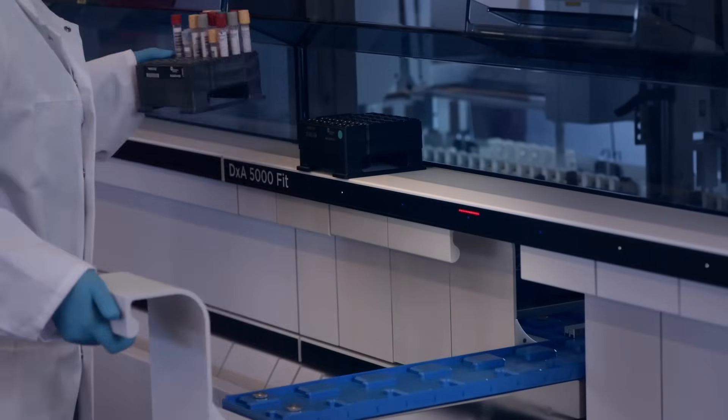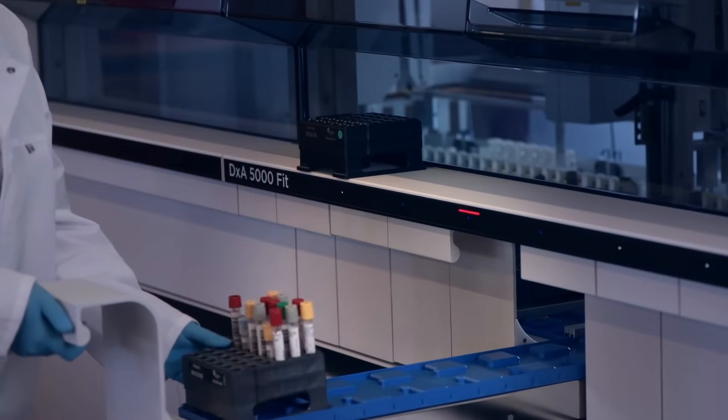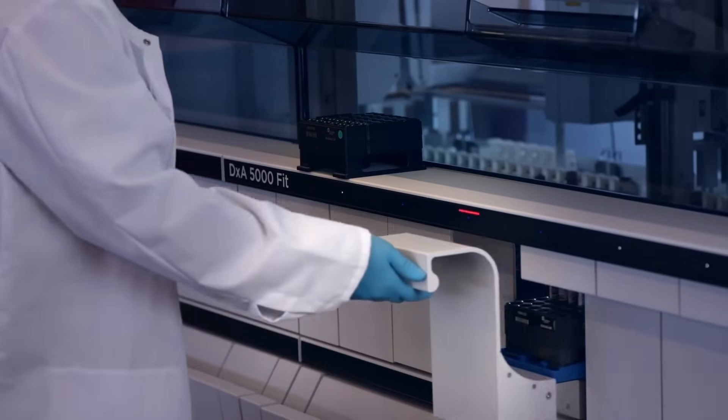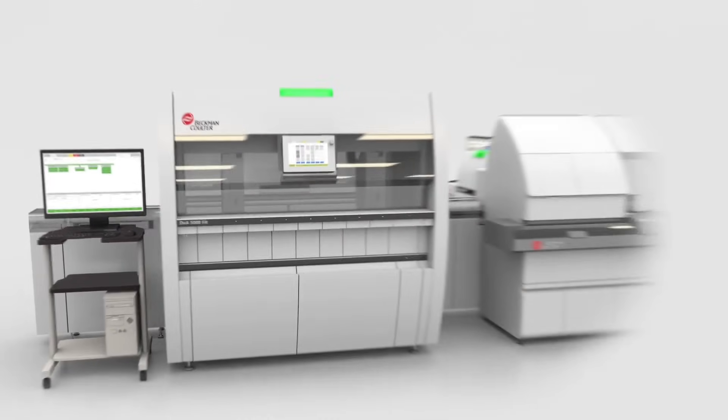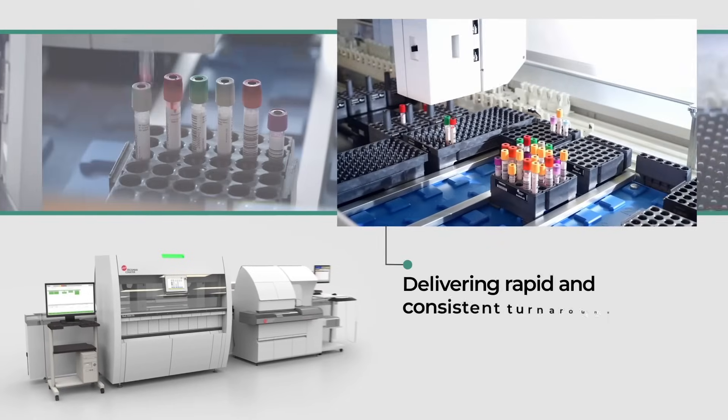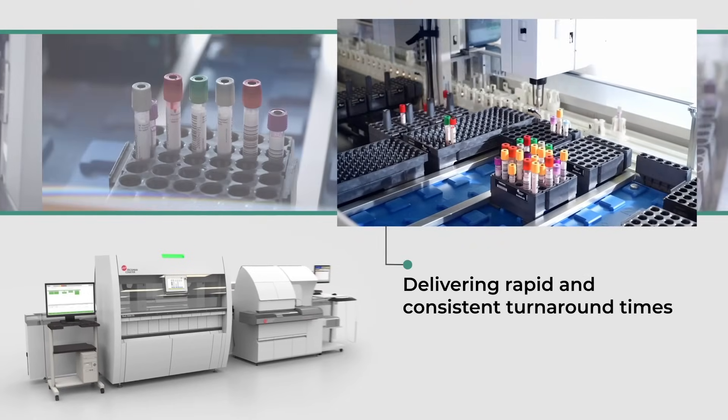Beckman-Coulter Diagnostics workflow automation solutions introduce a fundamentally improved approach to laboratory workflow by making intelligent automation accessible to labs of virtually any size.